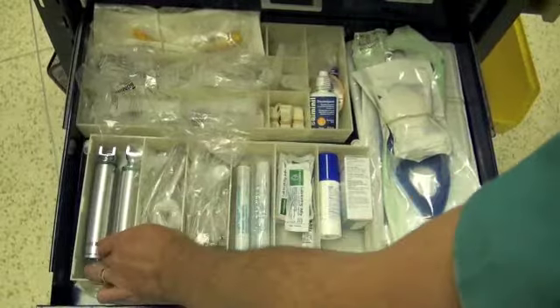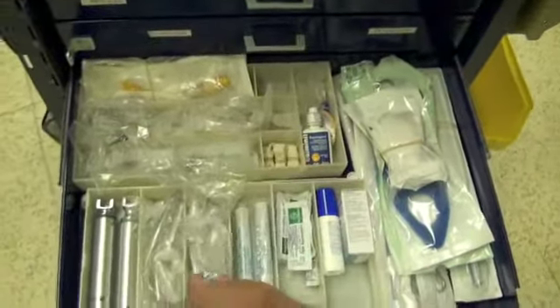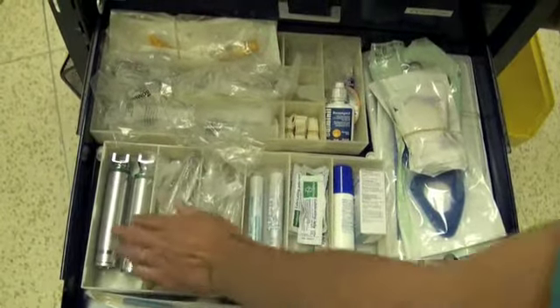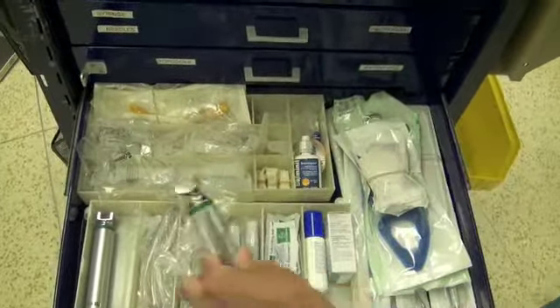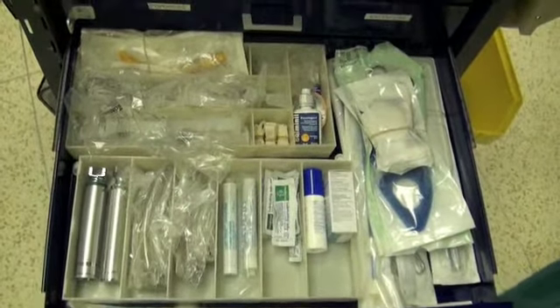and this includes, off to the left here, laryngoscopes, and in this particular instance we've got MAC blades. This is a MAC 3 blade. There should be two in there. There's two MAC 4 blades, and there is two laryngoscope handles. When you come in the morning, you may want to check your handles and make sure that they actually work, and that is done by putting one of the blades onto the handles.